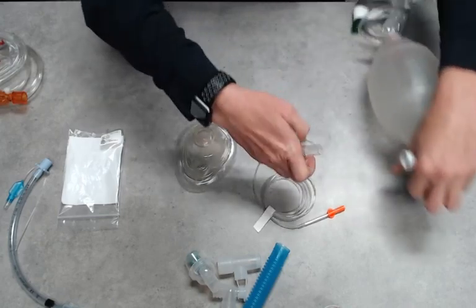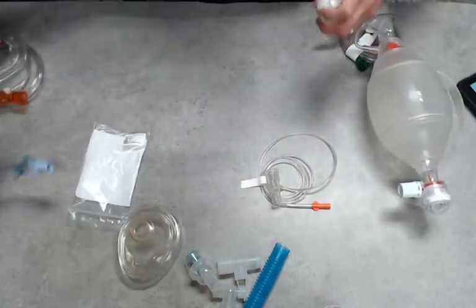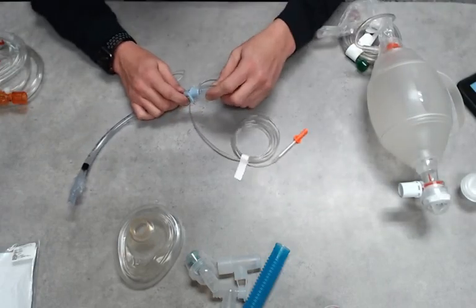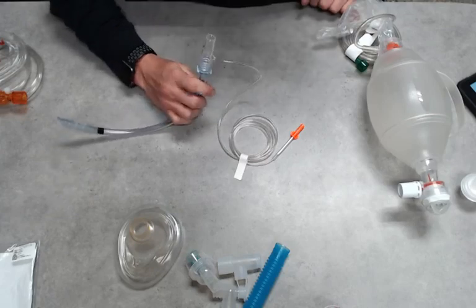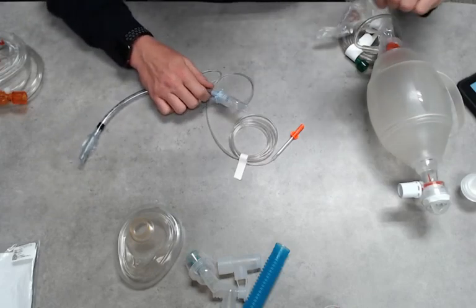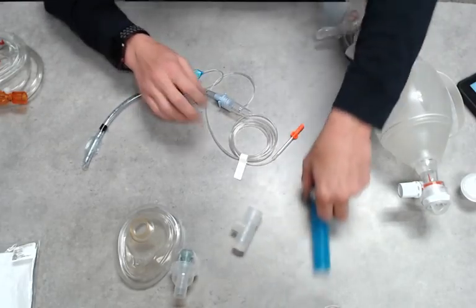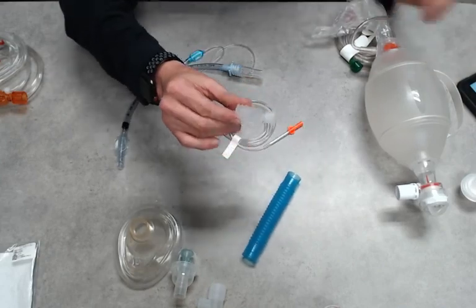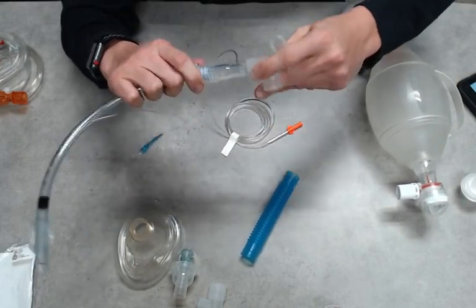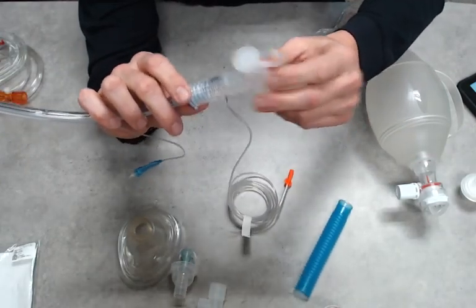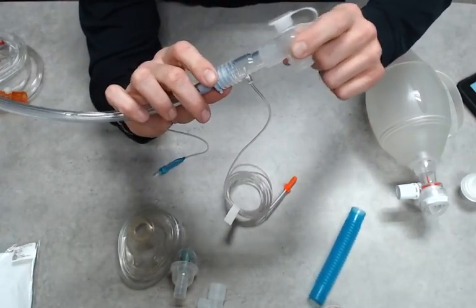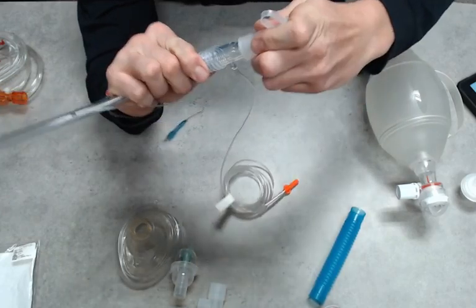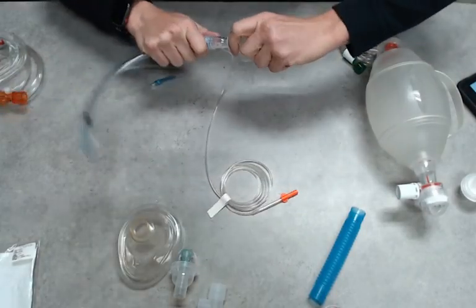Now from here we're going to make it a little bit more advanced. So let's say that we have our intubated patient. We said that gold standard, end-tidal must go on first so we can confirm our placement. Always. Now we're going to grab our SVN inline kit to pull our pieces out, and what we're going to need here is our elbow. Now keep in mind, depending on which side of the elbow you put on, one side is going to be a little bigger diameter, so it's loose, it's not going to make that tight connection. The other side is going to have a more narrow diameter, so that will fit nice and snug. From here we're going to add our filter.